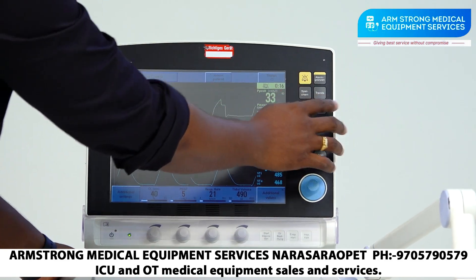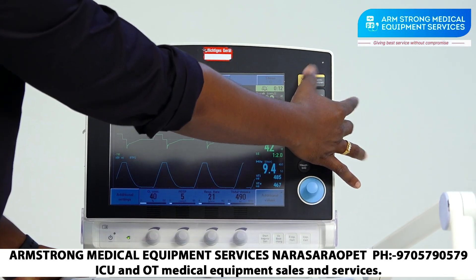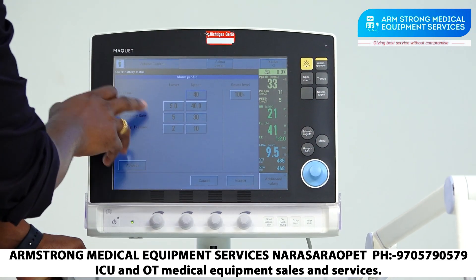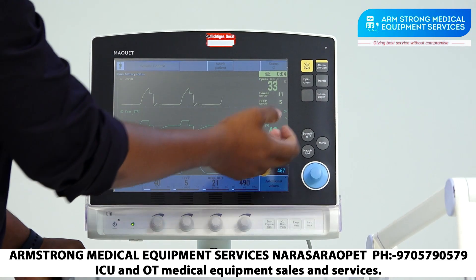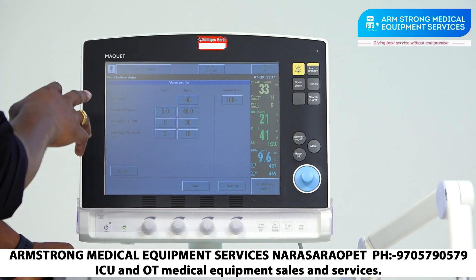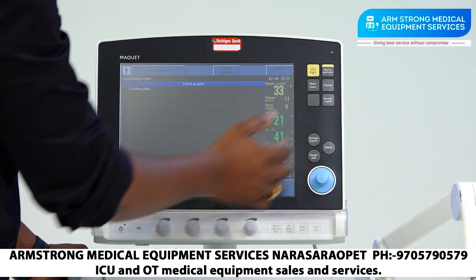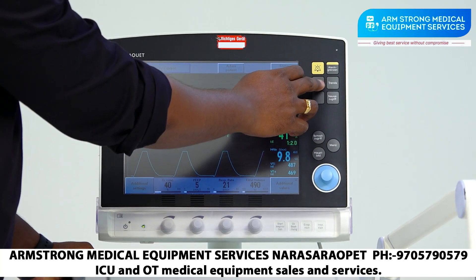Here are the keys: this is the 2-minute alarm silence key, and this is the alarm setup key where you can set high limits, low limits, and sound level. In Volume Control mode we have an Auto Set option, but it is not available in SIMV mode. This is the trend data — 24-hour trend data and previous history can be viewed here.